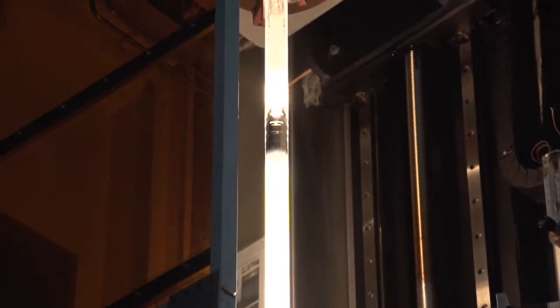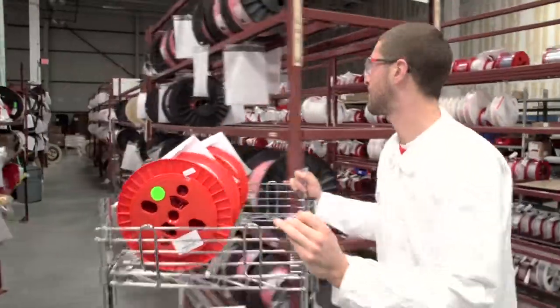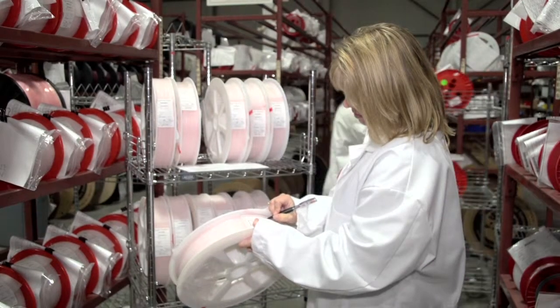Having solid control of the supply chain, OFS produces the custom product your medical application demands.